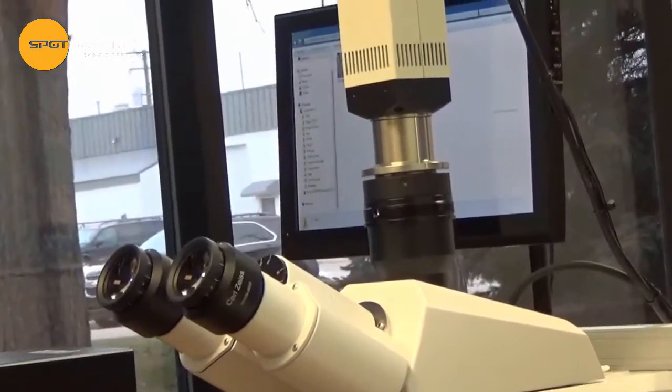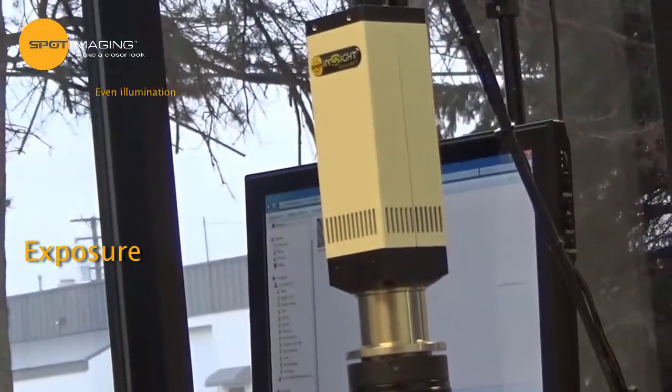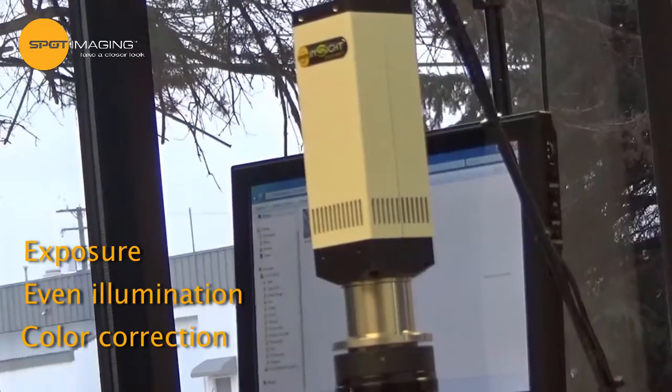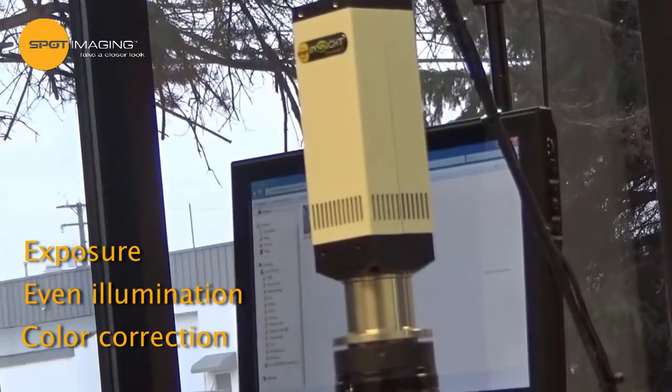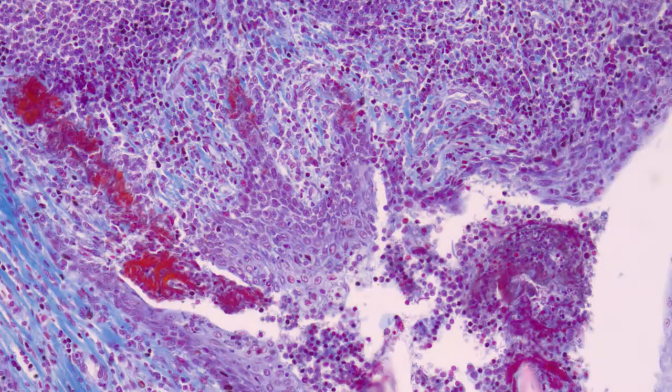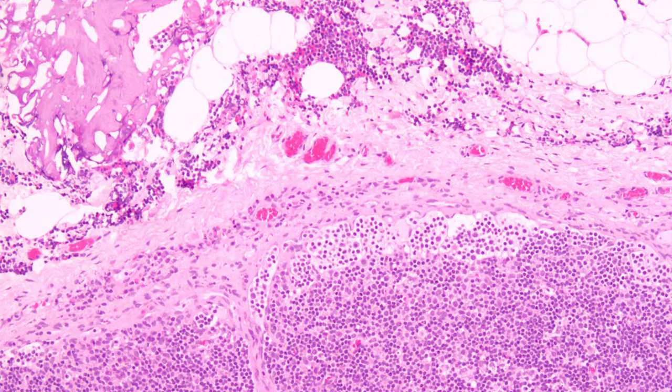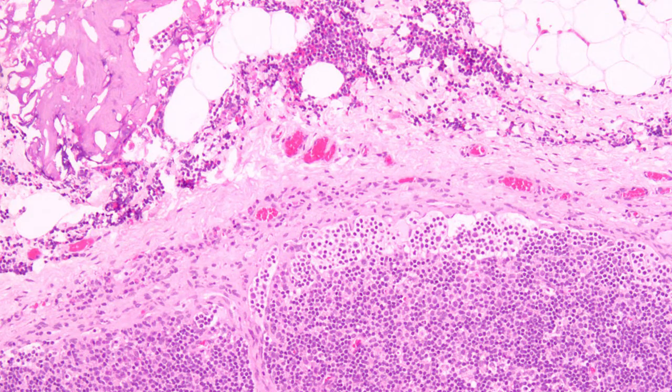The InSight Camera is adjusted for exposure, even illumination, and color correction. These features eliminate time-consuming manual post-processing while ensuring your images present you at your best.